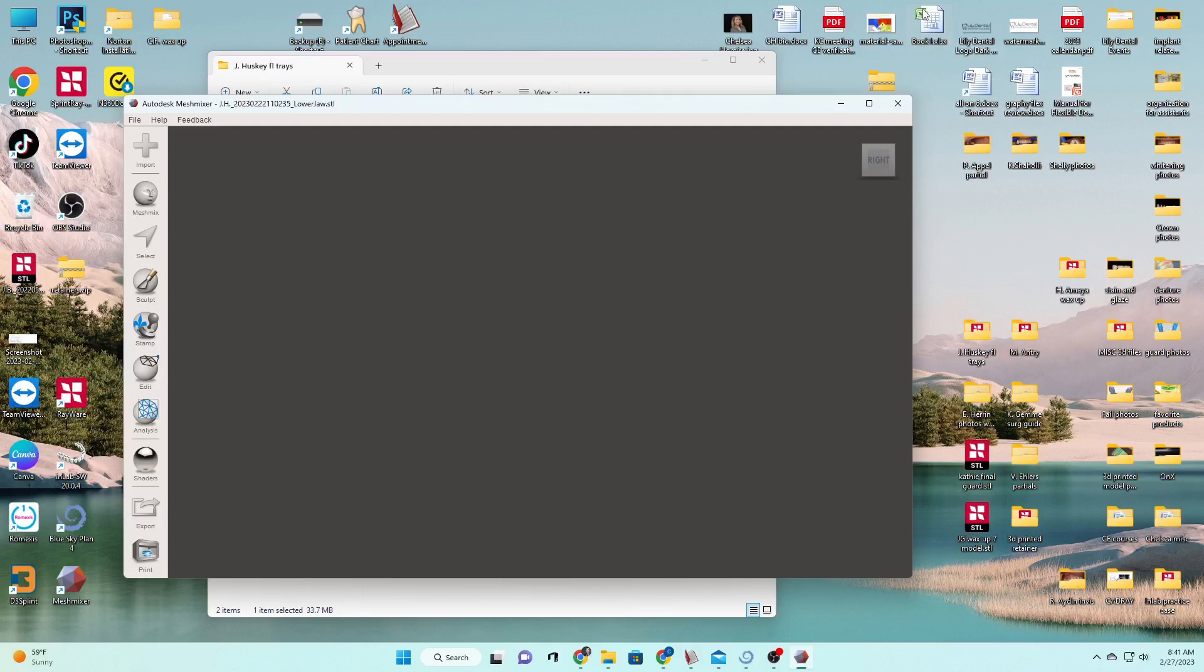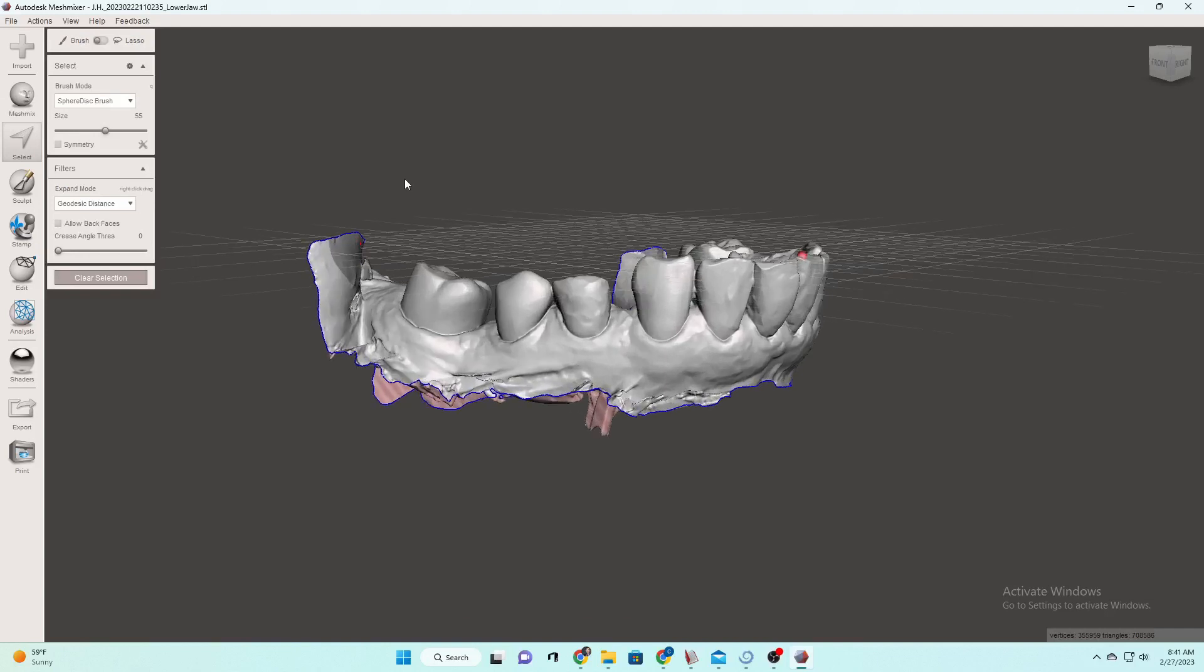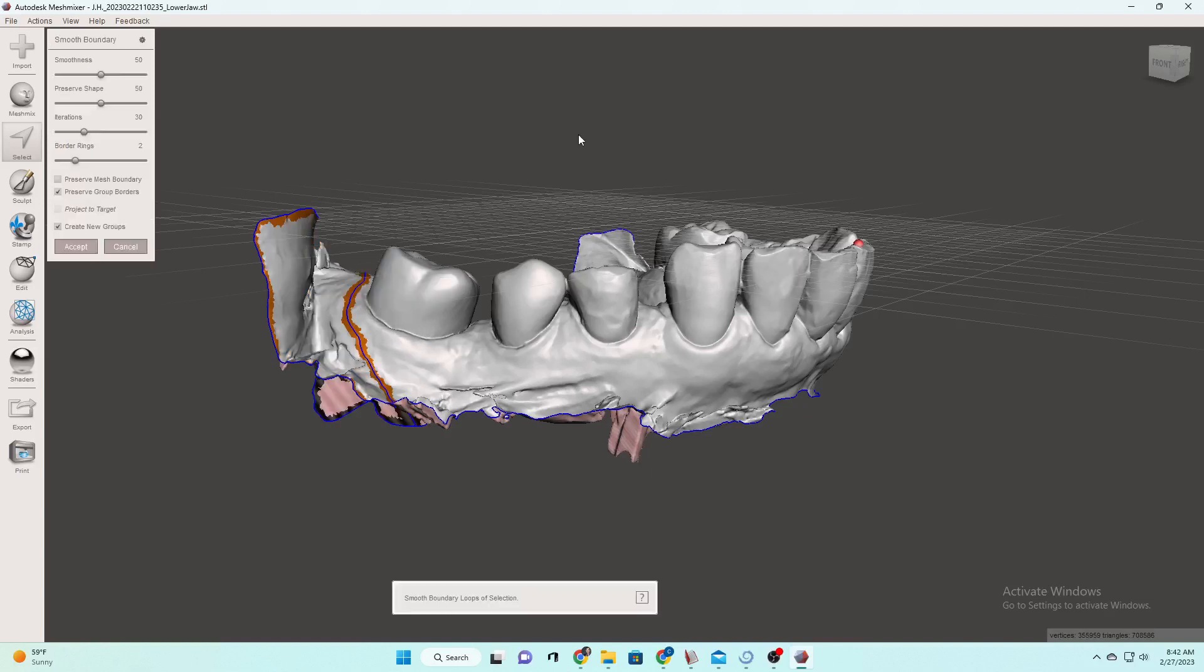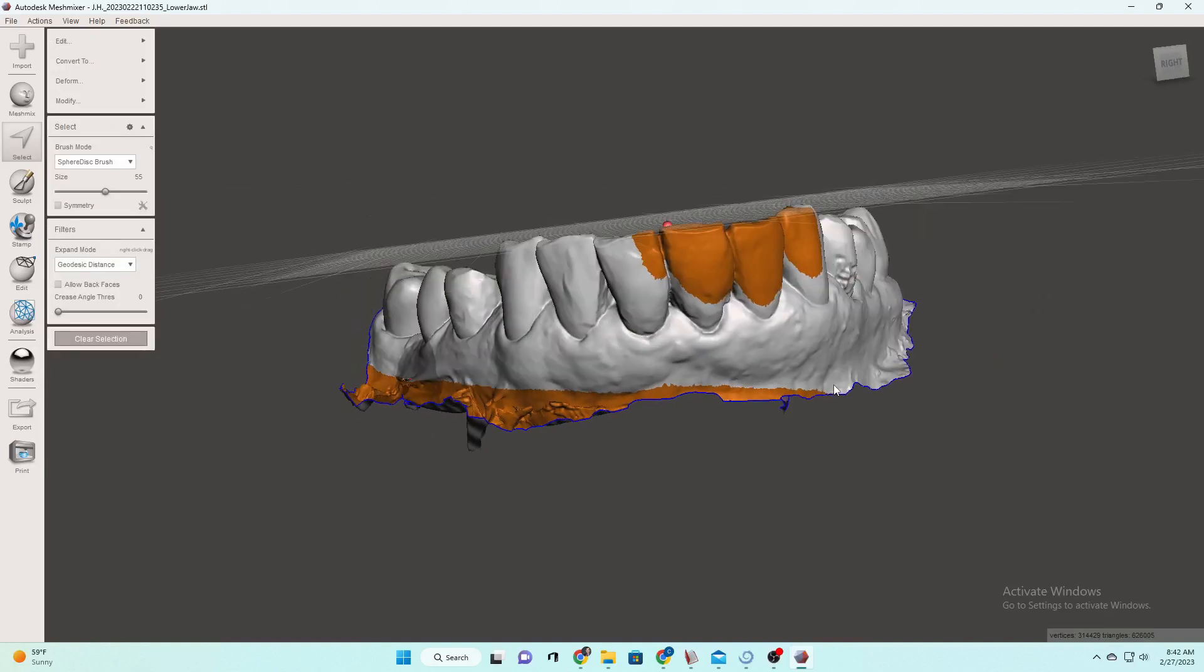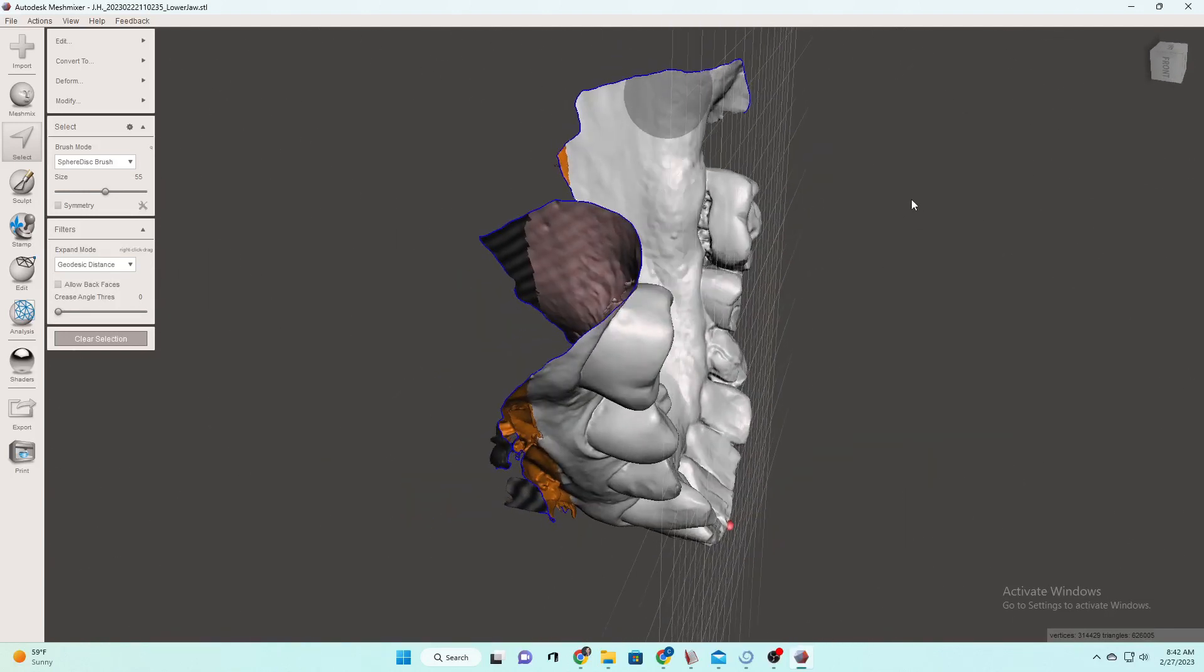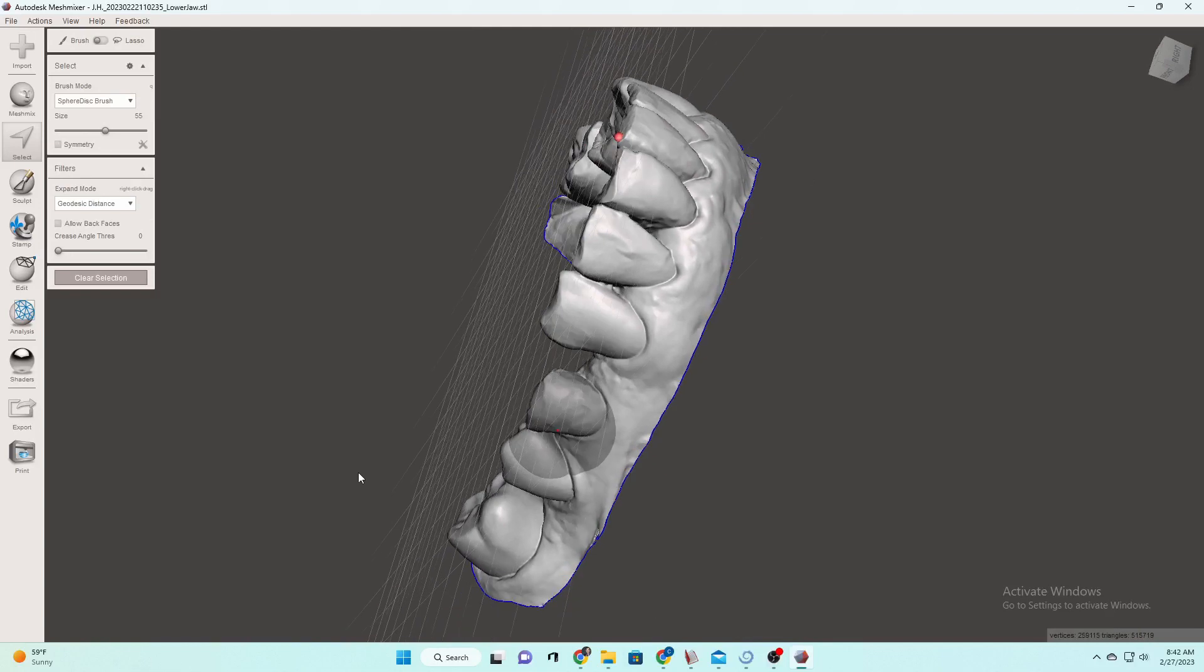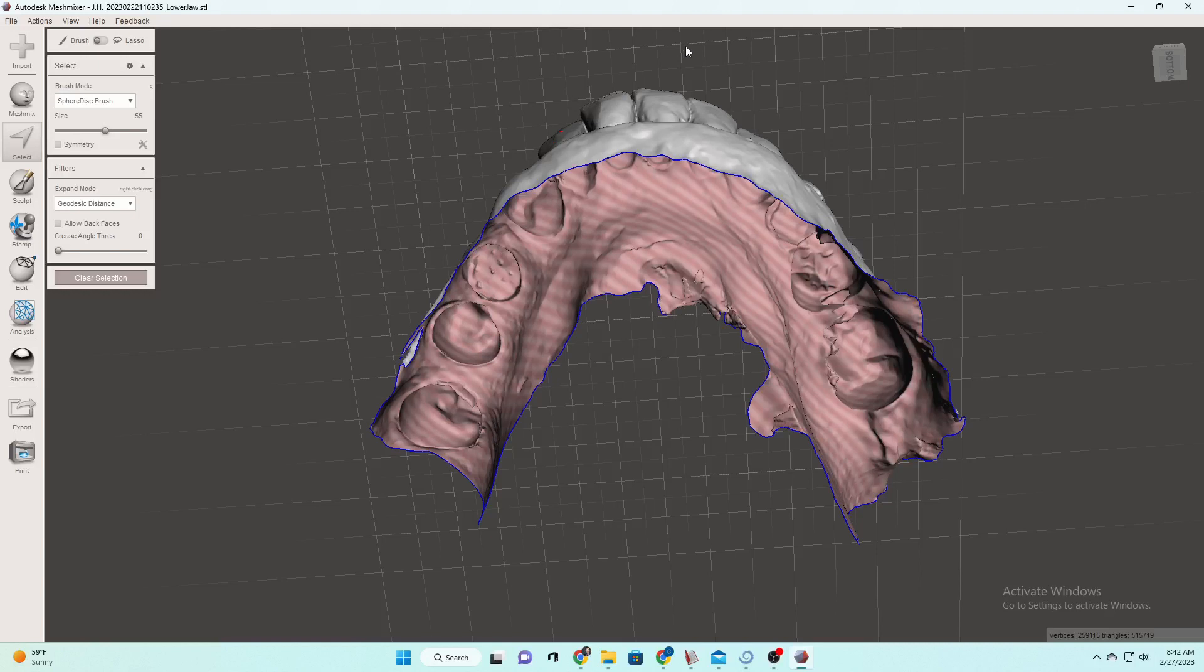And then same thing, we're going to do the same thing for the lower. We're going to make this lower a solid and then we will print them. So we're going to use our highlight tool, but like I like to do, I like to just click and drag, shift and click to unhighlight something if you didn't mean to. B for border and delete. And then same thing on the bottom down here. We're going to drag this because I want anything underneath that line. But that includes see what it did there. So just shift and unclick it. And B for border, enter and delete, delete out that stuff.